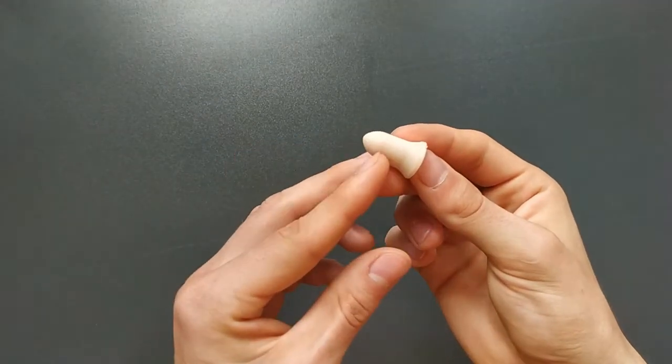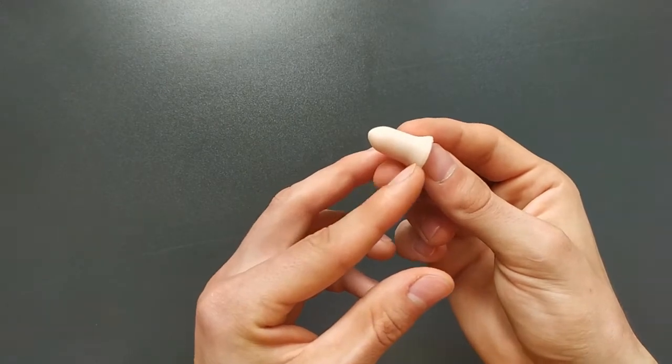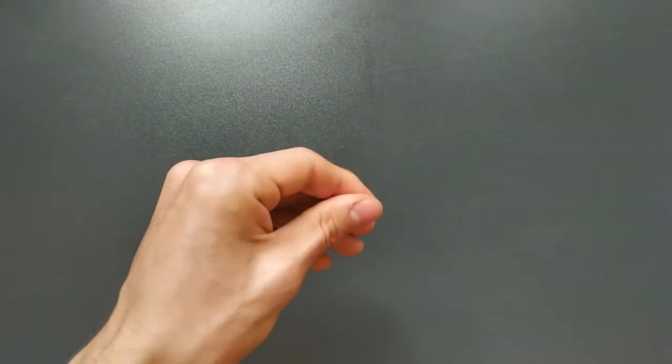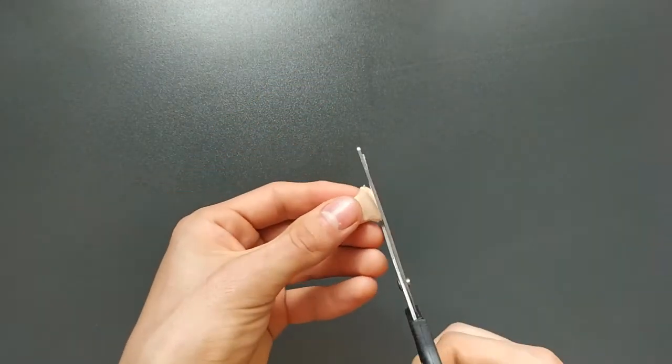In case the plug is too big for your ear, you can adjust how deep to insert the plug. Also you can cut out part of the plug for a better fit.